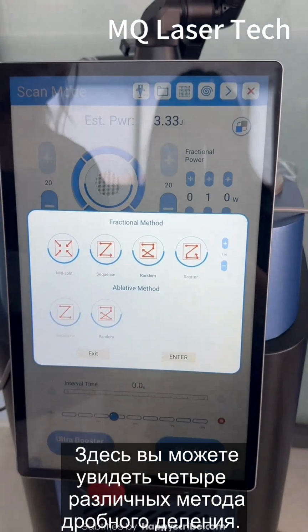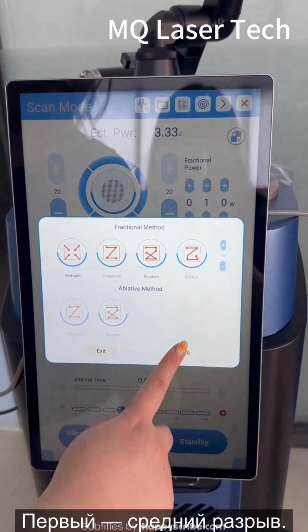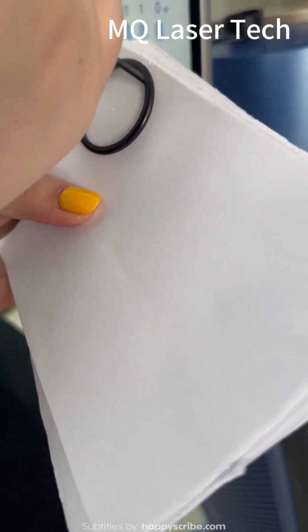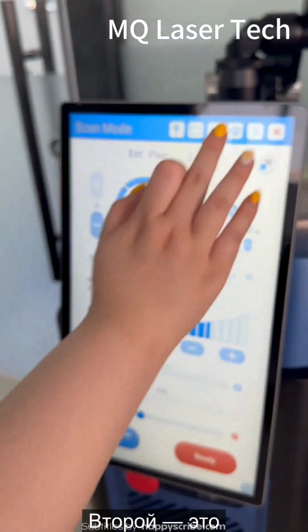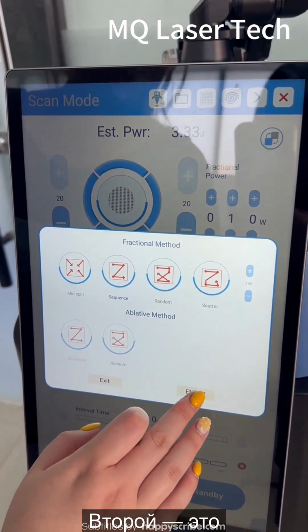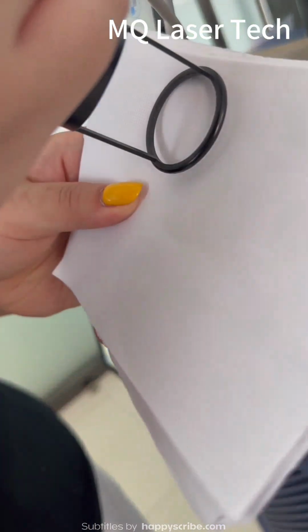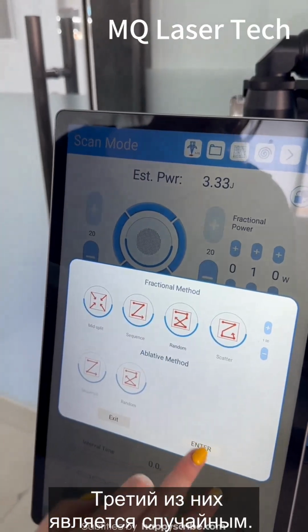And here you can see there are four different fractional methods. The first one is mid-split. The second one is the sequence. The third one is random.